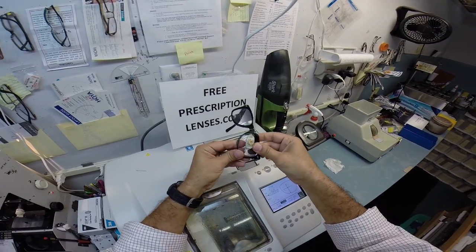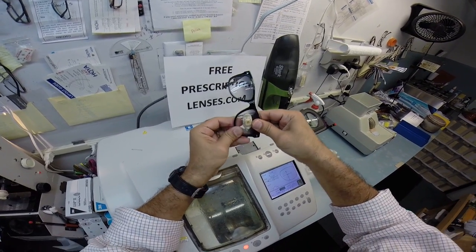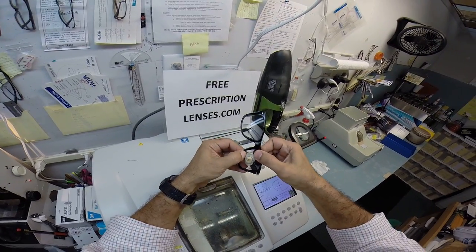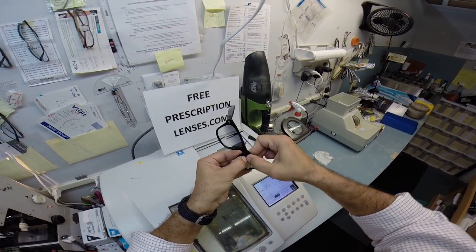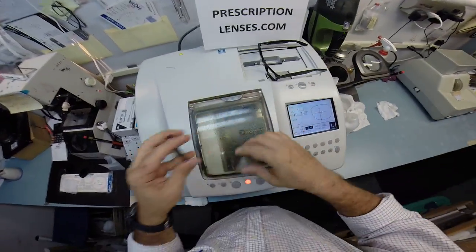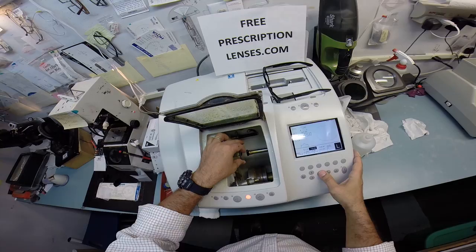So let's see if this fits. I'm going to tuck it in at the outside corner. And Dave, I apologize. I've been silly all night with these videos. You just caught me on the tail end of silly. Oh, it doesn't fit. Let me take a little bit more off the golden rule. You can always take more off of the lens. You can never add it back on.